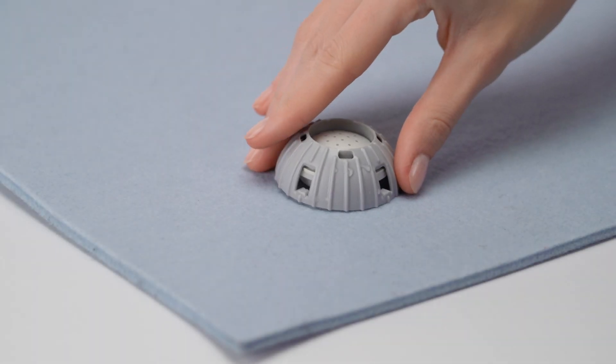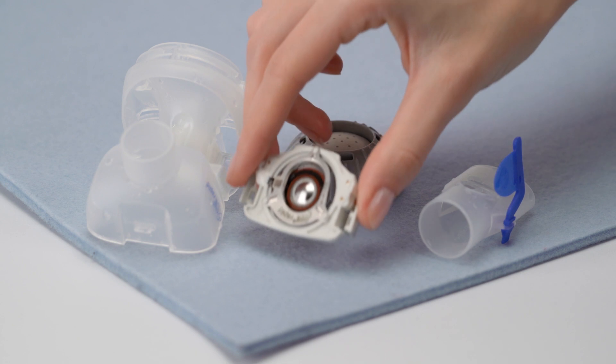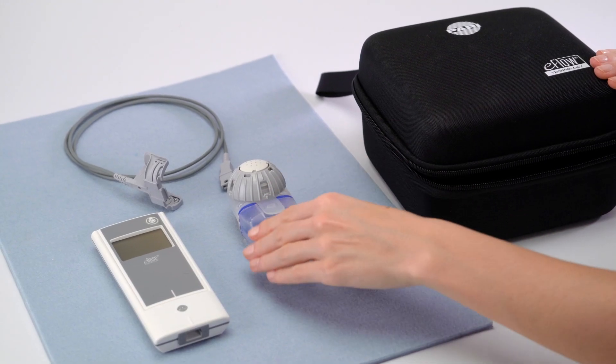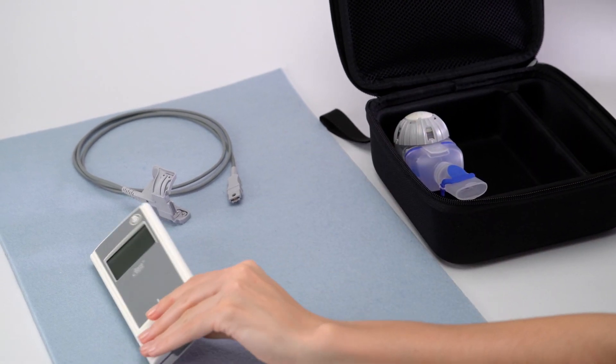Then place the individual parts on a clean and dry surface and allow to air dry completely. Once dry, store the nebulizer handset in a dry and dust free place.